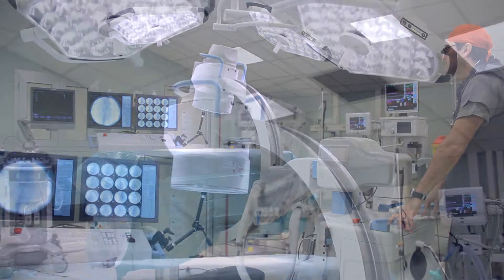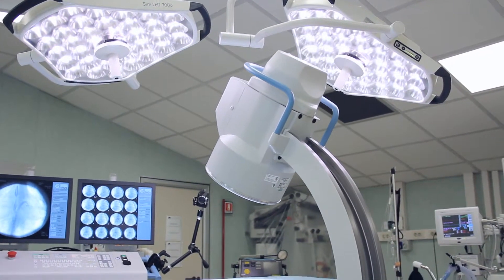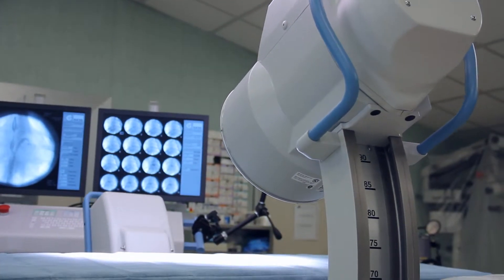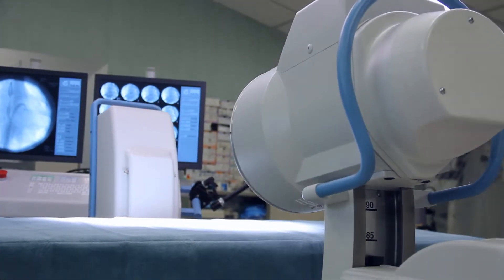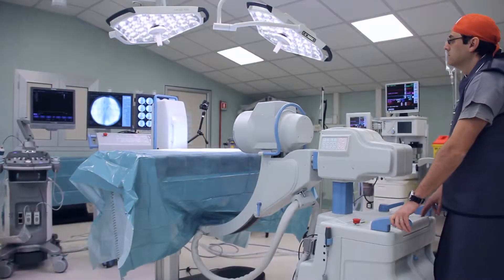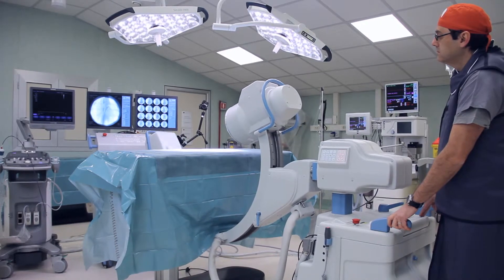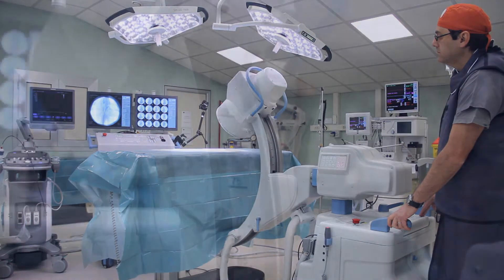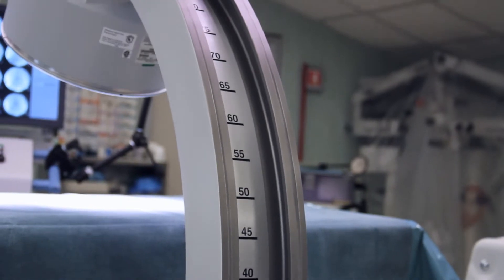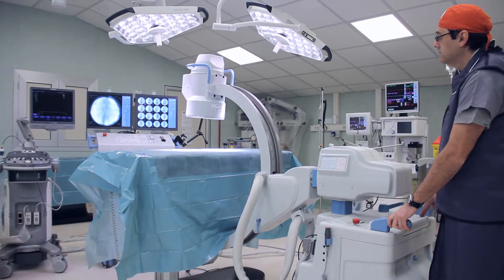The wide range of stand movements and a large focal distance allow carrying out almost any radiographic examination of almost any patient. A simple C-arm tilt indicator helps controlling the precise positioning of the unit.